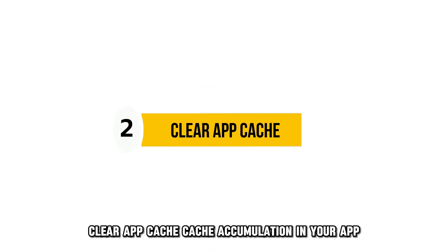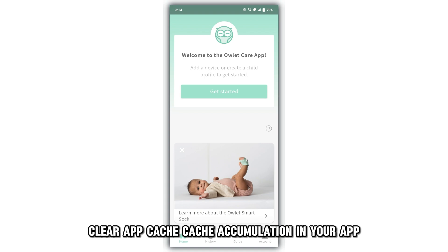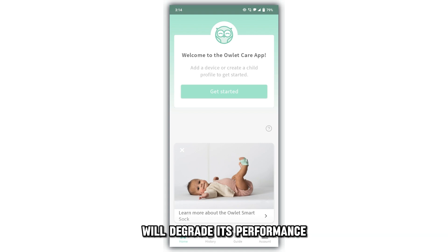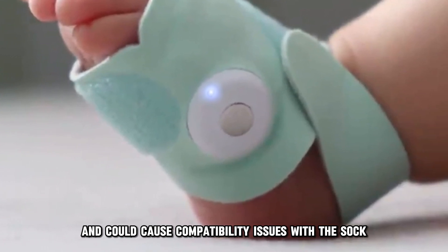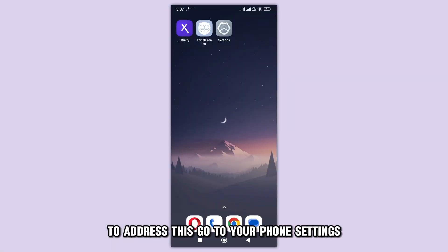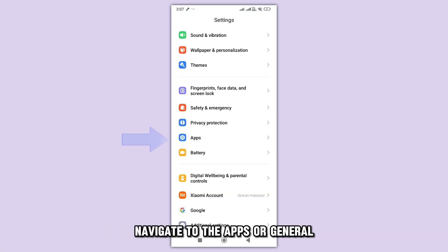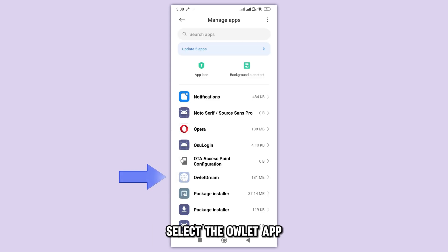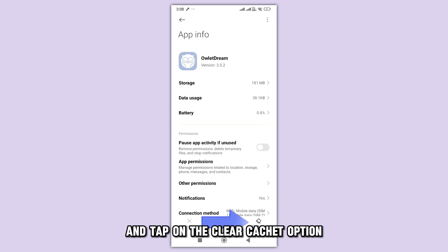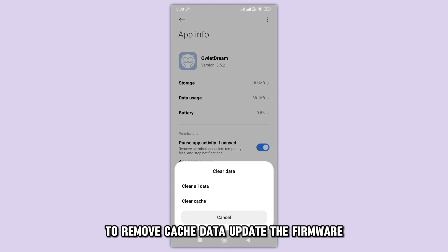Clear App Cache. Cache accumulation in your app will degrade its performance and could cause compatibility issues with the Sock. To address this, go to your phone's settings, navigate to the Apps or General, select the Owlet app, and tap on the Clear Cache option to remove cached data.